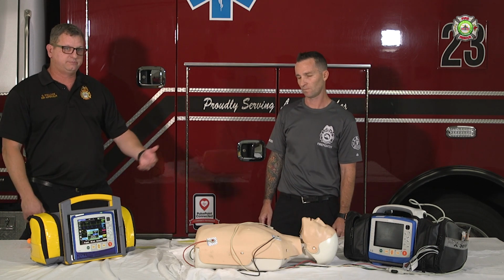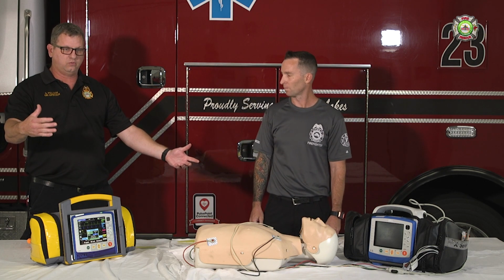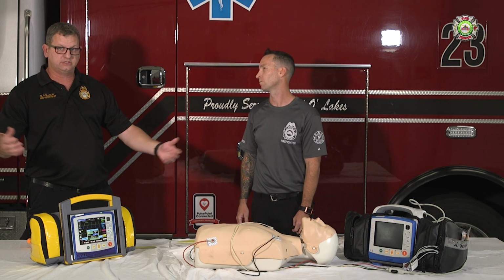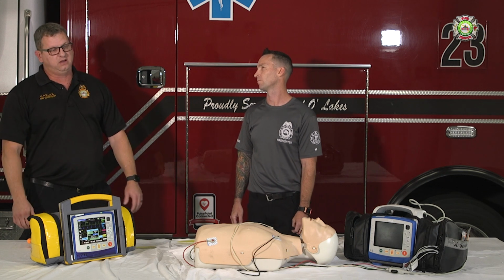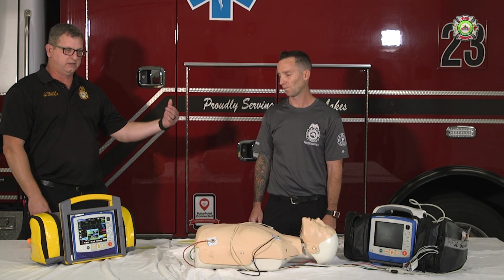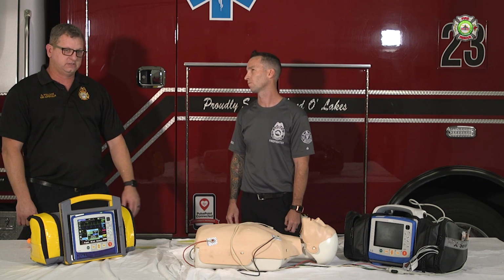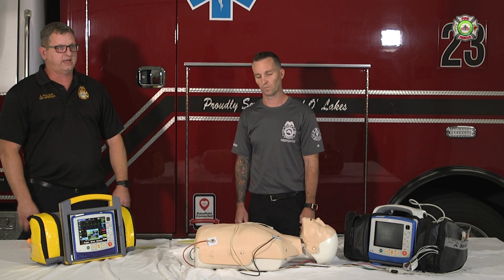Another thing you can try is put on a portable pulse ox. It'll show what the real rate is, because you'll have perfusion obviously to the finger. The rhythm on the monitor may not match up. So if you got the rate you want on your pacing and that same rate on the pulse ox, it's more than likely accurate.